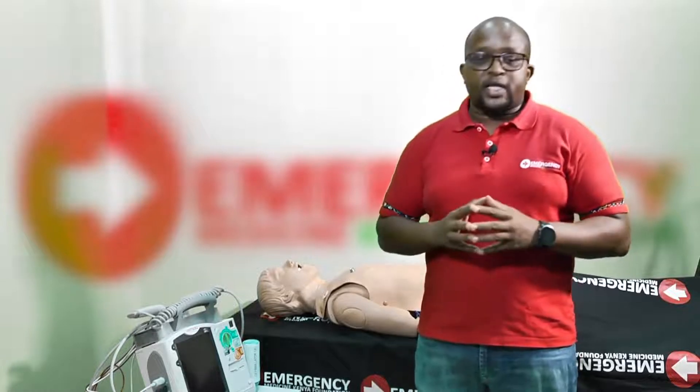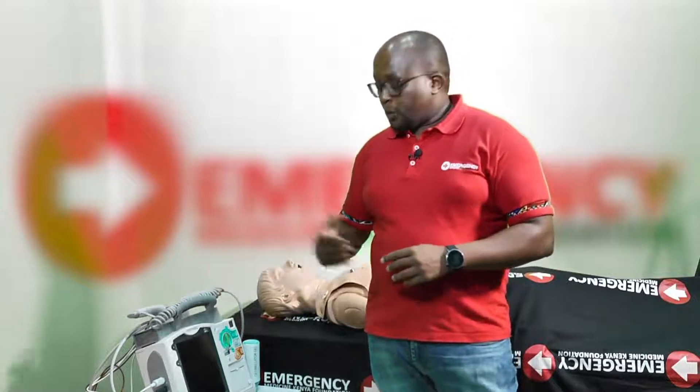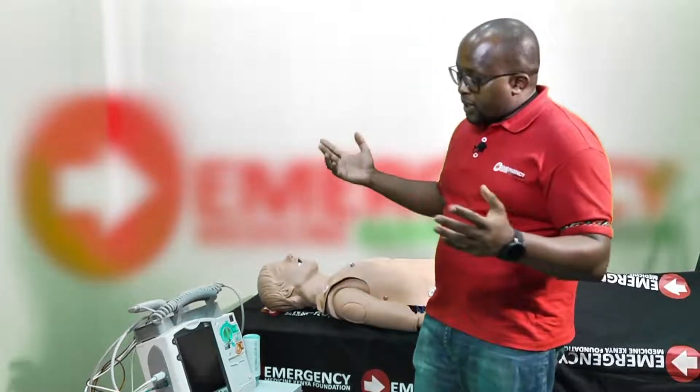The first part of this series is to discuss the defibrillator. Many people are not very comfortable working with a defibrillator — they fear the machine and will not use it in clinical practice because they have not been trained. This video is to make sure you have a clear understanding of what a defibrillator is, how to use it, and to make you more comfortable using one.